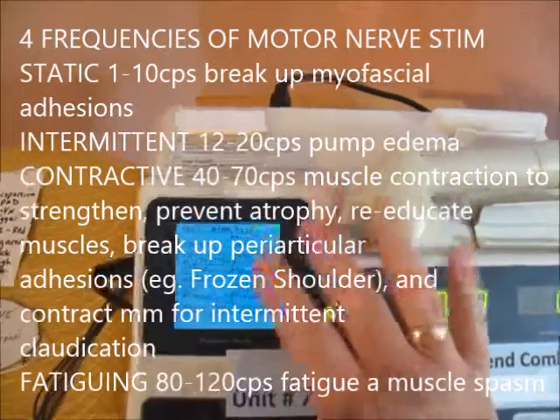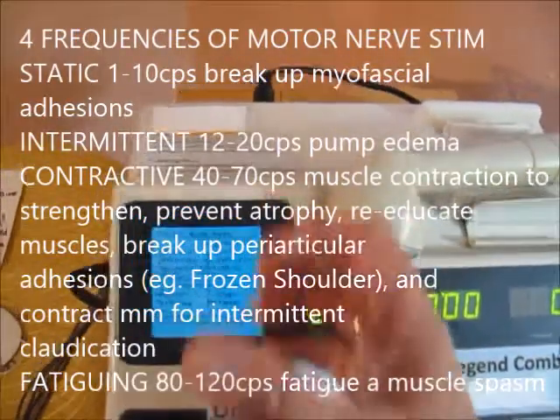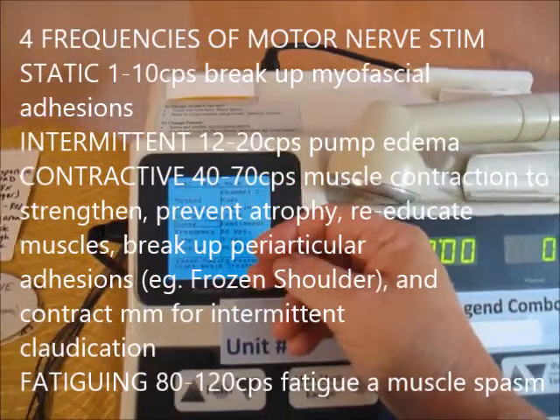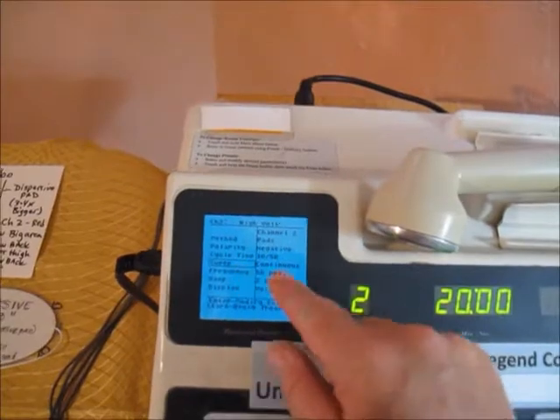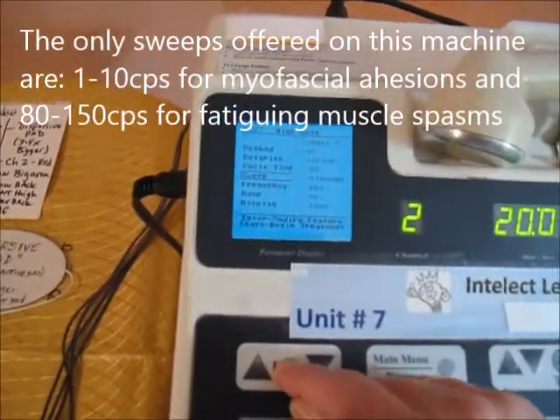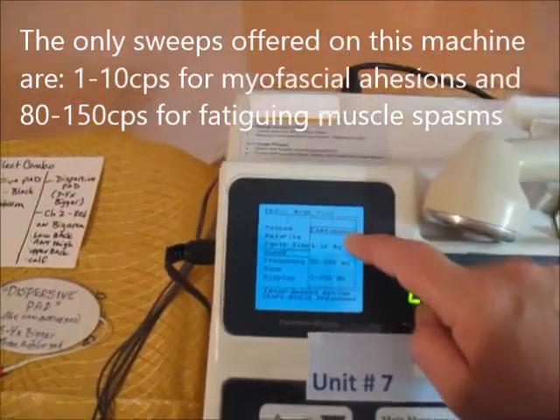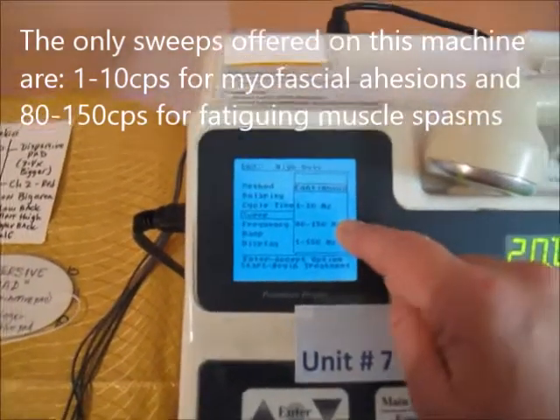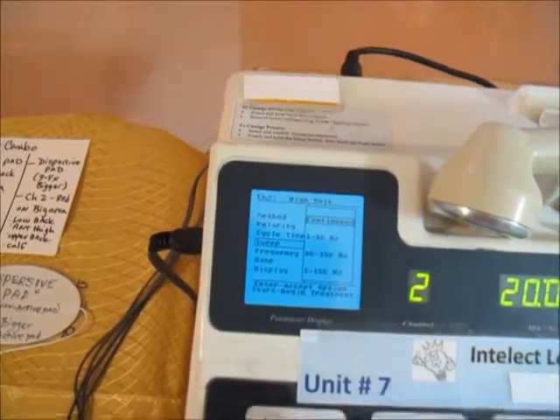The fourth motor nerve stim frequency is fatiguing tetany, designed to make a muscle contract so long that it relaxes — used to get rid of spasms. The new machines don't have sweeps through all of those ranges. Looking at the available options: 1 to 10 is good for myofascial adhesions; 80 to 150 is available but not perfect — 80 to 120 would be ideal for fatiguing. The last option, a broad spectrum of 1 to 150, we wouldn't use. So I'll keep it on continuous and move to frequency.